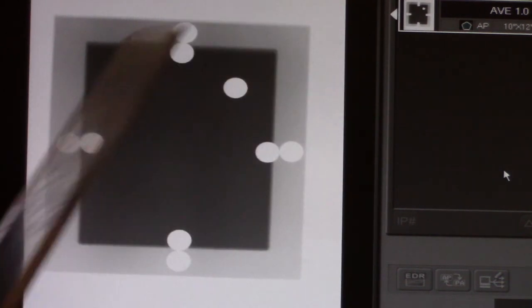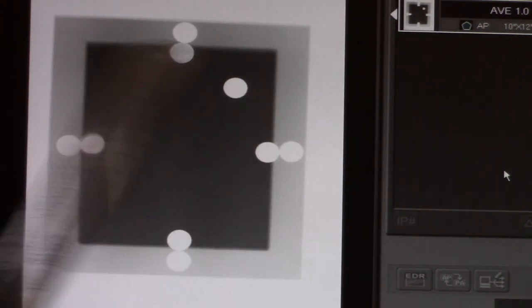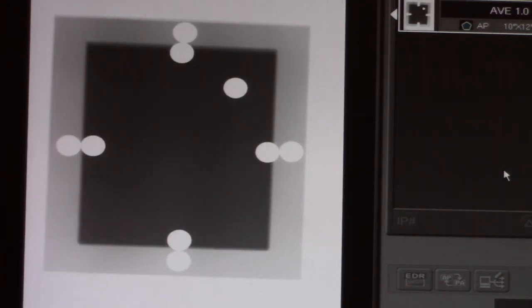We're allowed to be off if we total up all of our discrepancy. That can be as much as 40 millimeters or four centimeters, but it can be no more than that. If your variation totals more than four centimeters, you need to call for service. If you're off by more than 20 millimeters on any given side, you also need to call for service.